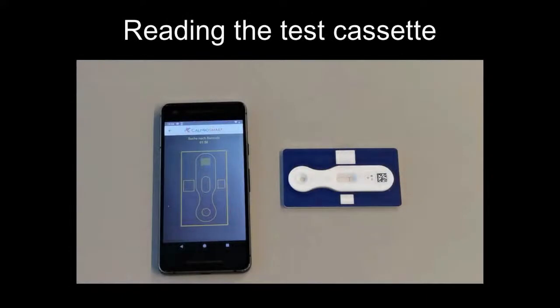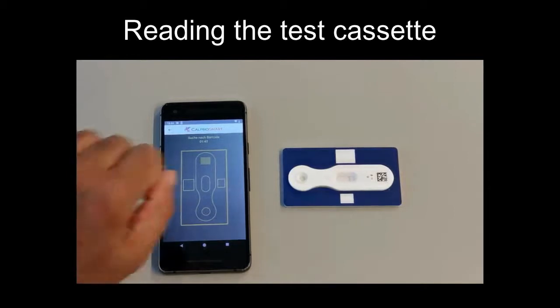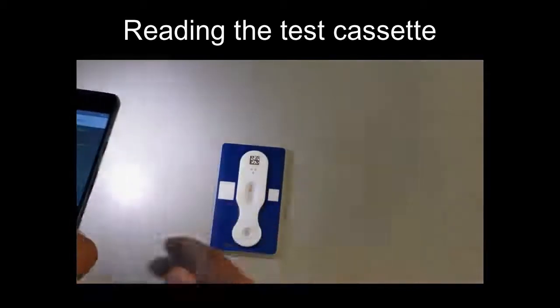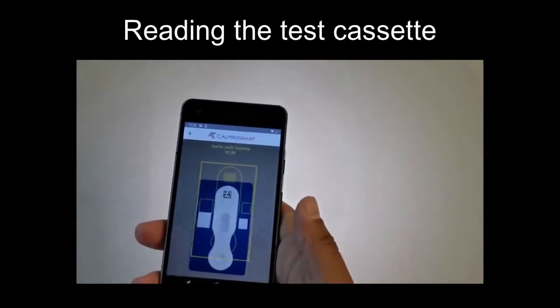Once the 15 minutes of incubation time is up, the app will directly move to the capture screen and you can perform the reading of the test cassette. You will have a 2-minute window to perform this step, and you will have the timer at the top of the screen. Here you will need to align the blue frame to the frame outline on the screen. You will get pop-up messages to tell you to move the phone up and down and tilt it side to side and back and forth in order to achieve the right angle for registration.